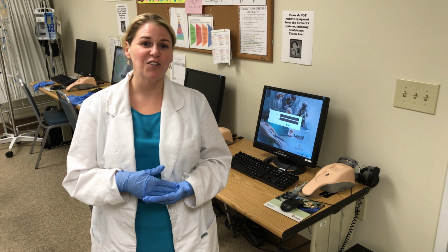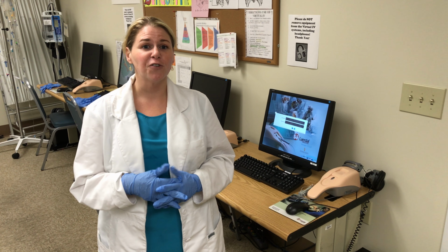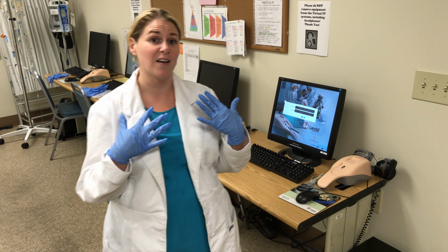Hi, my name is Lindsay Jones and I'm going to be doing a demonstration here on how to use the virtual IV. The first thing you want to do is make sure that you wash your hands really good, and then you want to put on gloves because the instrument's really sensitive to the oils on your hands.